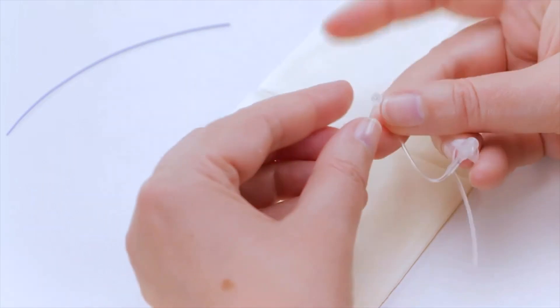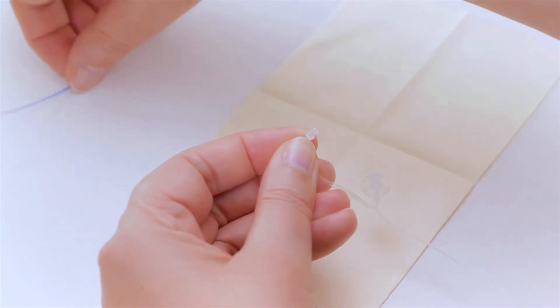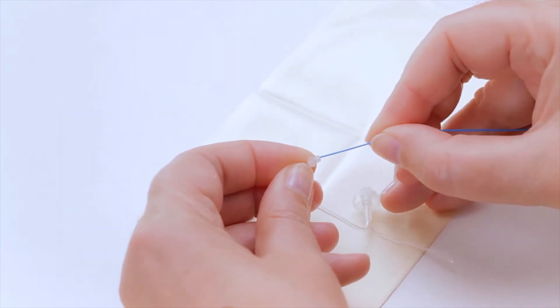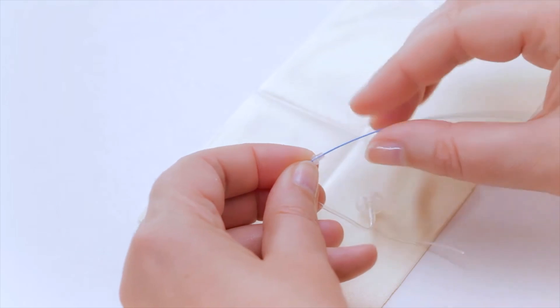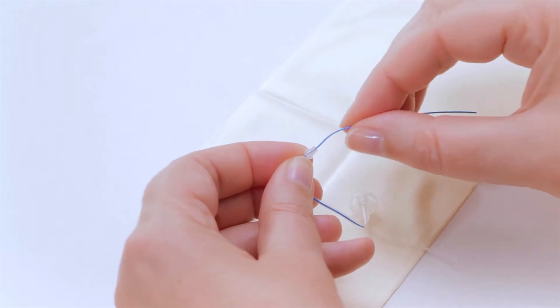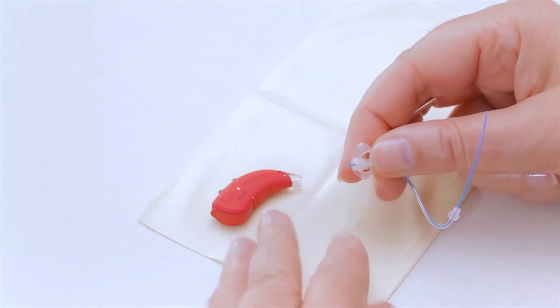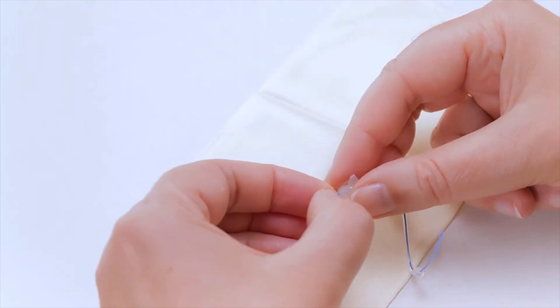Next, thread a cleaning wire through the base of the tubing. Push the wire all the way through the tubing and out the tip. This maneuver will push out any debris or earwax from the tubing thereby removing any blockages. Repeat this process until the tubing is clear.